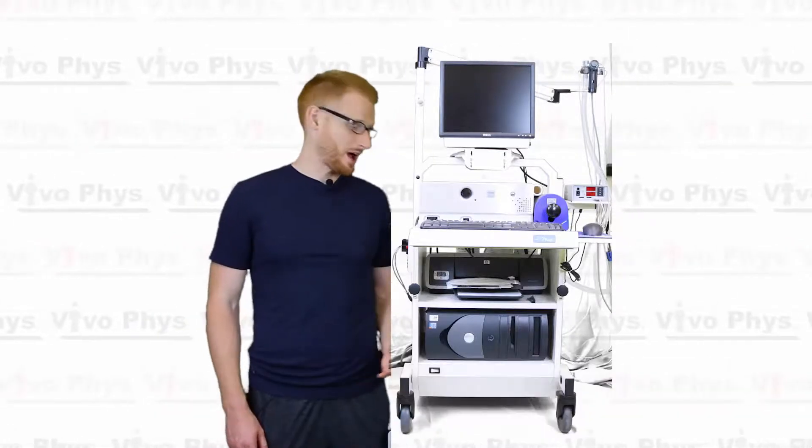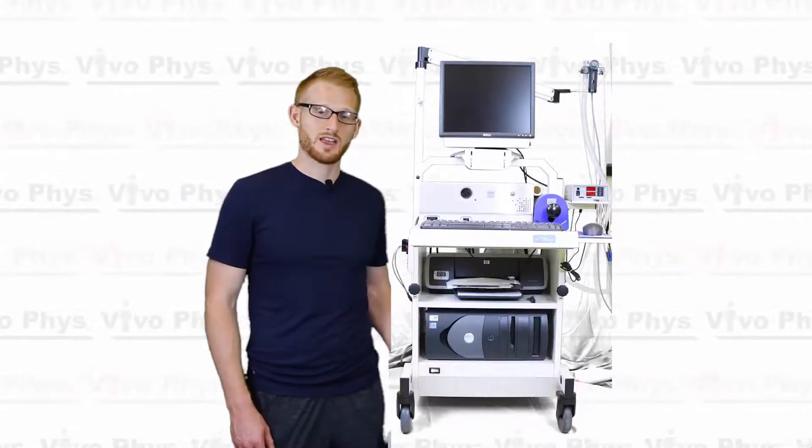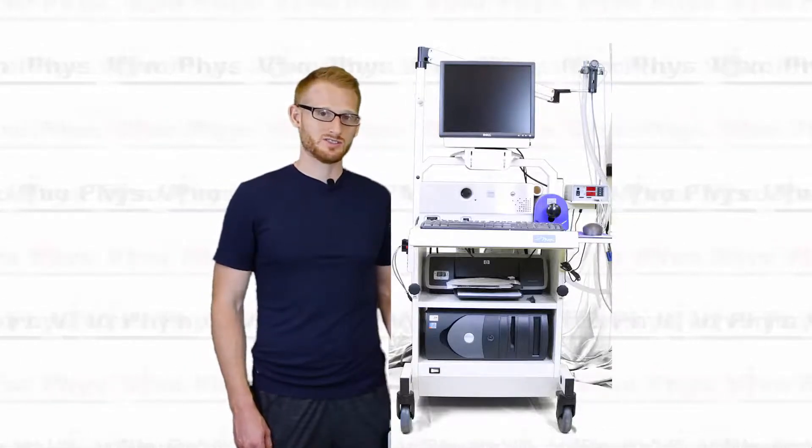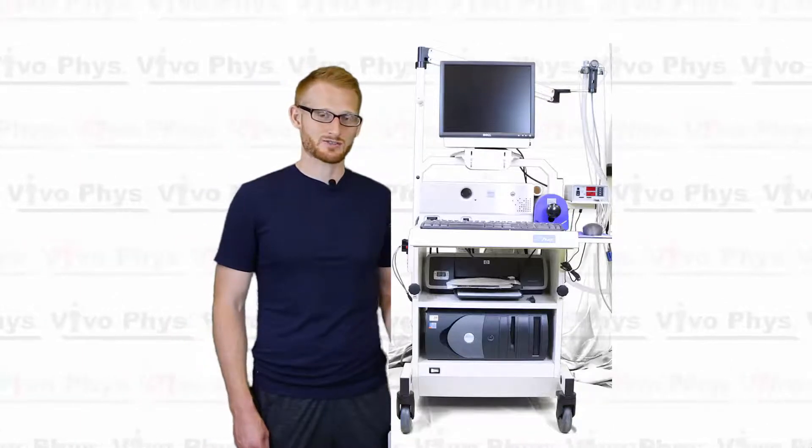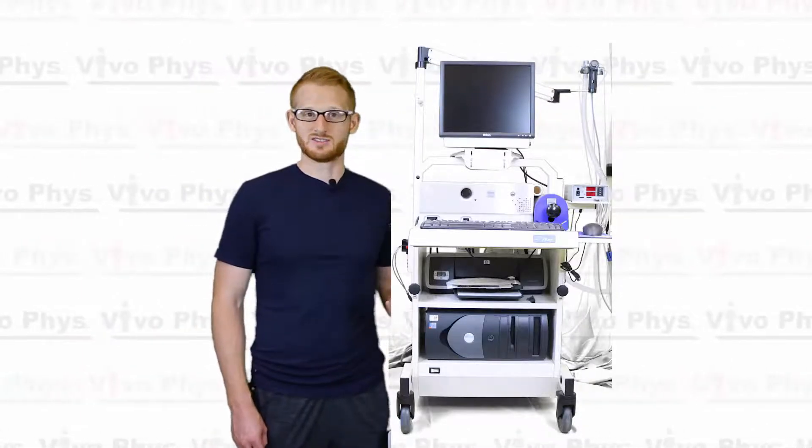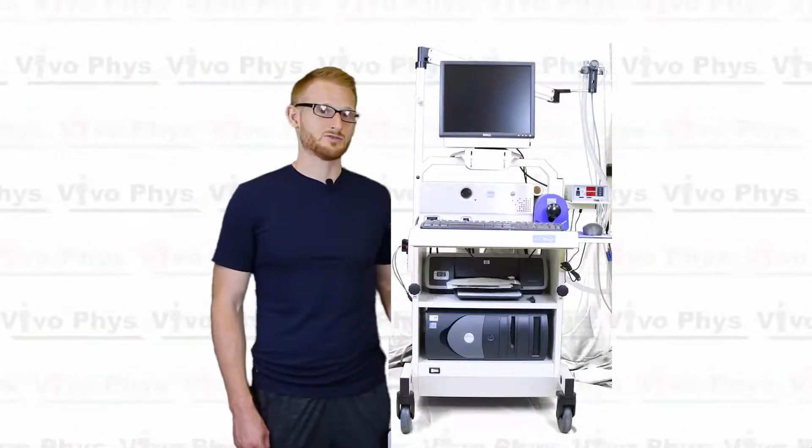Hi, I'm Dr. Matthews. I'm here at Montclair State University in the Exercise Science Lab. I'm going to show you how to calibrate a VMAX Encore metabolic cart. This is used to do metabolic testing, whether it's at rest, during exercise, and it's very useful for getting VO2MAXs.